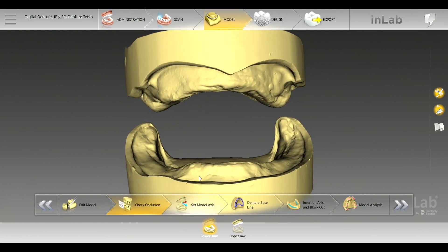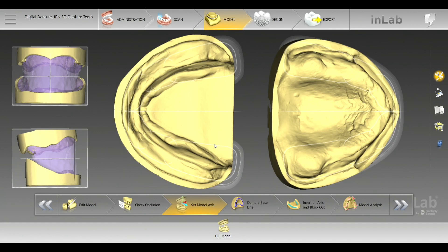Setting your model is the same way as you would in current software. You're going to align your midline in the bite rim and your vertical — that's why the bite rims are very crucial. It helps with the proposal of your teeth so much better. You want to start with the best proposal that you can get. You don't want to have to continue to move individual teeth. These teeth are already pre-occluded. You want to keep those in positioning so you don't start tweaking teeth and messing up the occlusal aspect.